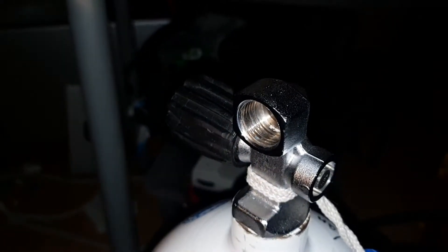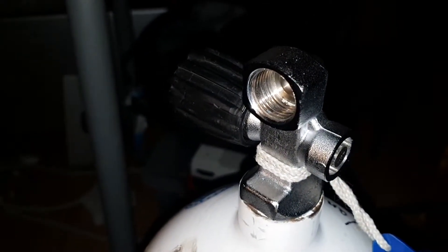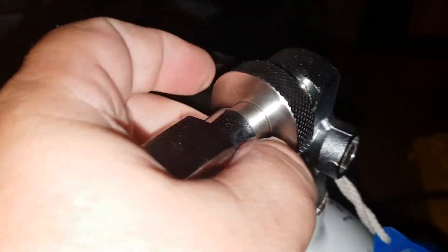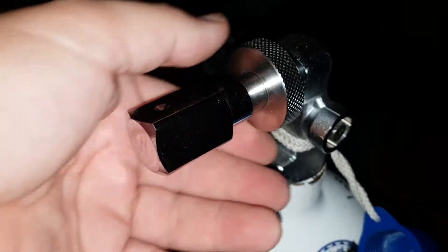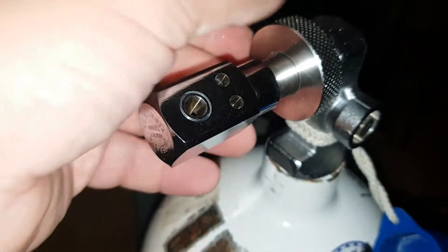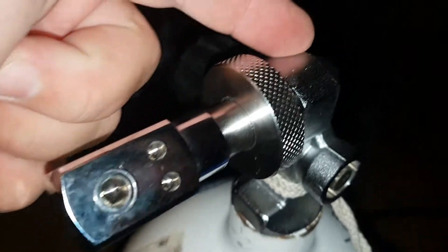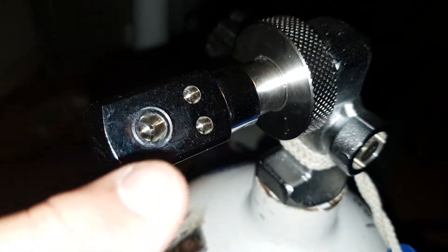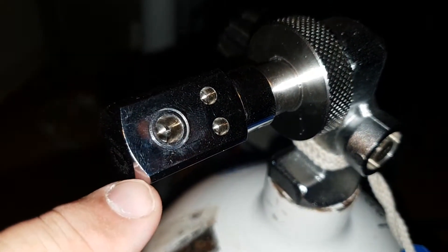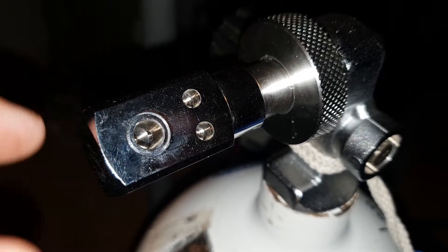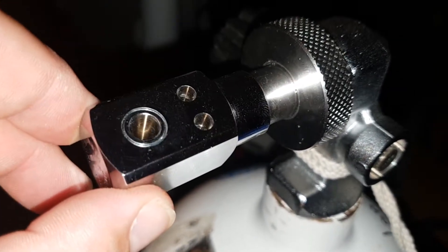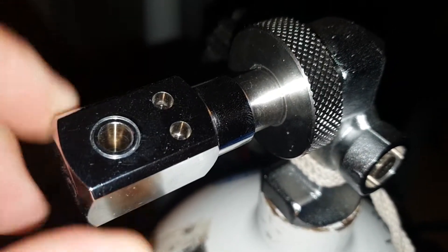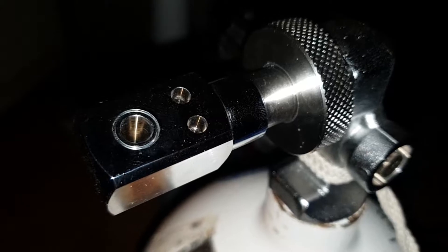...is to oxygen clean these tanks and fill them with oxygen or a high amount of enriched air. One advantage with high enriched air, if it's less than 40% and it comes from a scuba shop, is it doesn't use oxygen from the industry. What we can do is we can fit this little piece to it, and that goes from the scuba tank to this standard fitting, which is what the whole medical industry uses for emergency portable oxygen. It's called the pin index system.